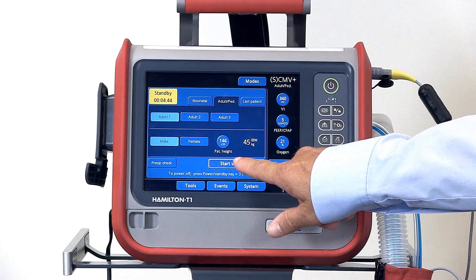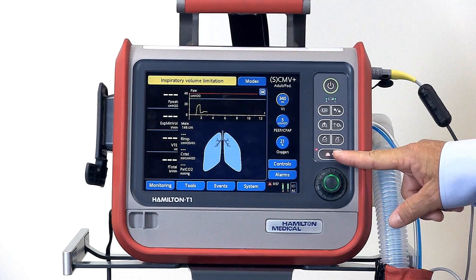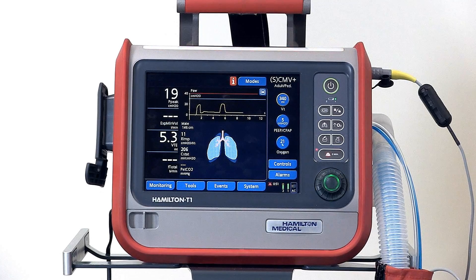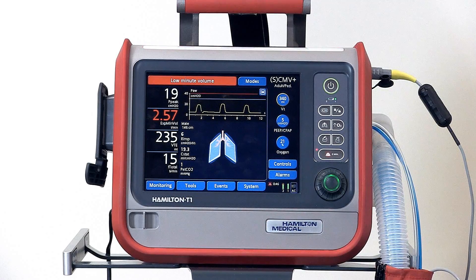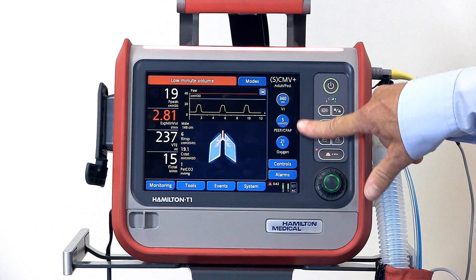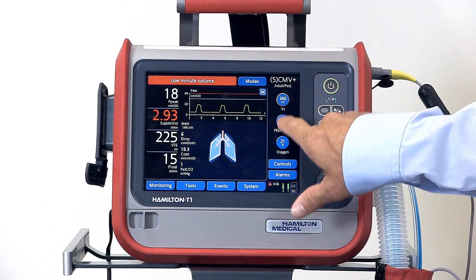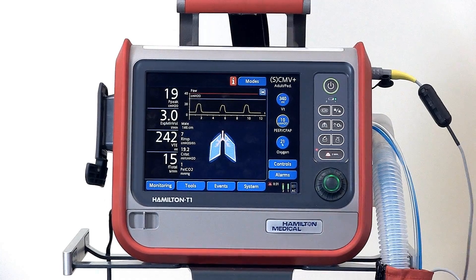To start the ventilator, simply press start ventilation on the screen. The ventilator will automatically start with the alarm silence activated, and after a couple of moments you'll see your monitored values appear. To make another setting change while ventilating, your basic ventilator settings are here on the right — just touch the basic ventilator setting you want to change and confirm.